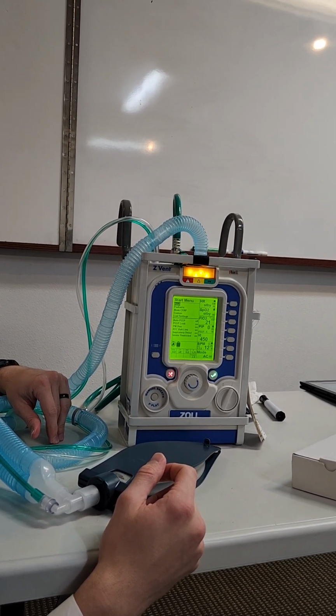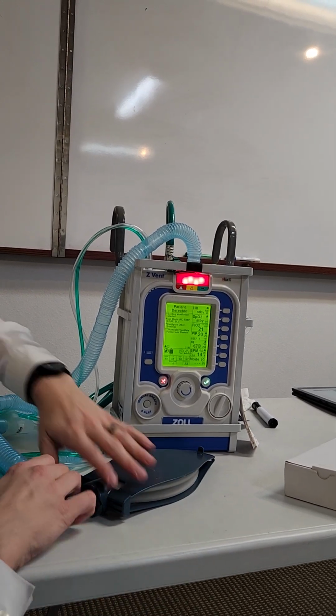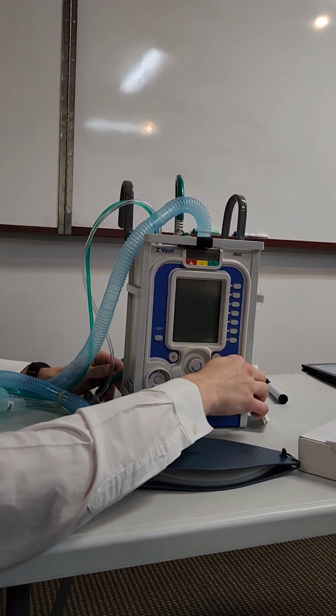So how do you fix that then? I think at that point you're just going to have to. Did you turn it off and turn it back on? No, you would. I was just about to say, no, you wouldn't want to turn it off. You just keep it on because you'd still have your setting.